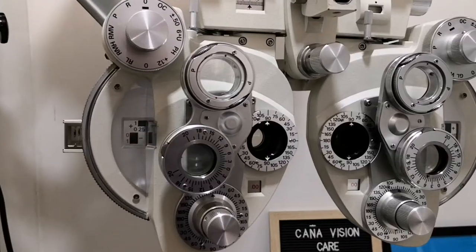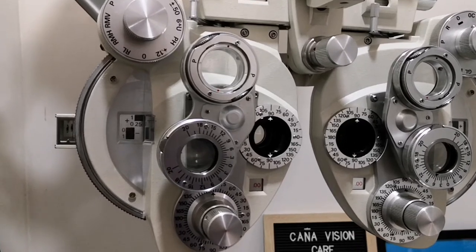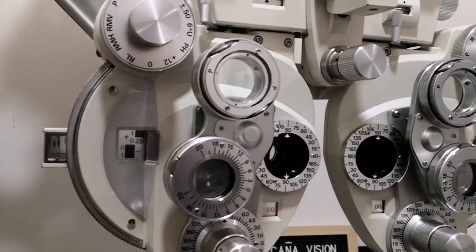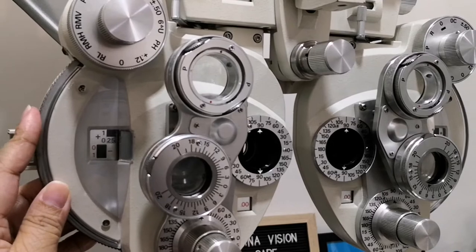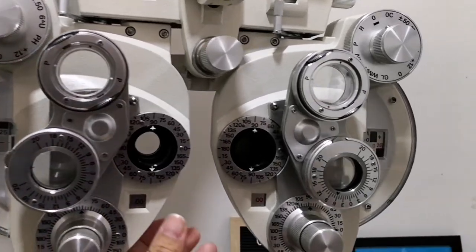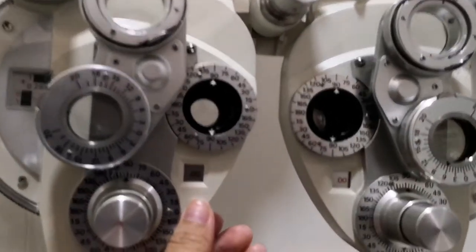First is the lens control. Lens control is the heart of the phoroptor. It is divided into two: spherical lens control and minus plano cylinder control.